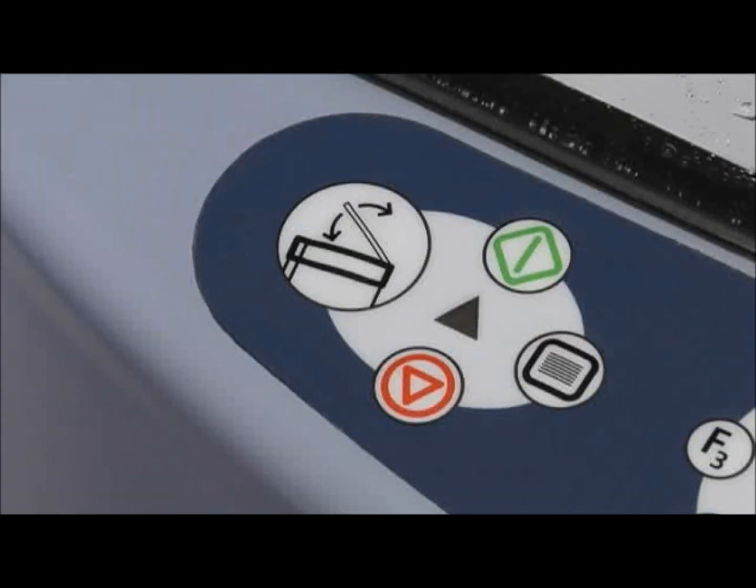Each side is controlled by its own keypad grouping called the basin control buttons. These buttons include the start button, cancel button, menu button, and a button to open or close the lid.